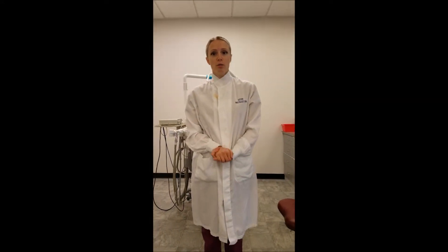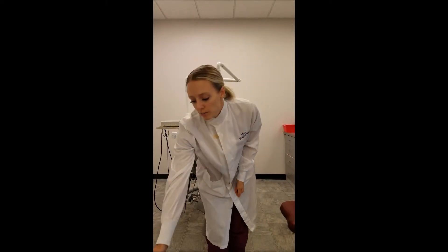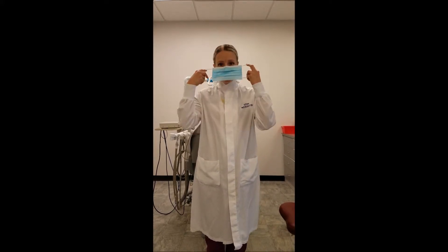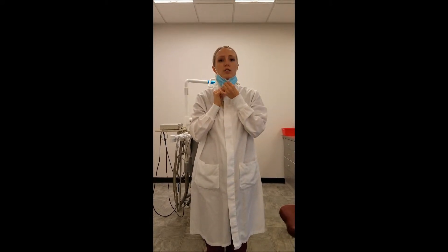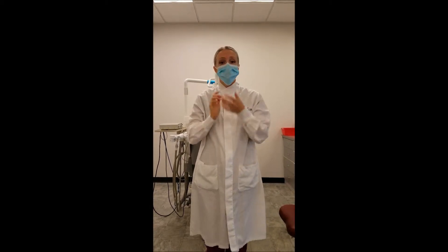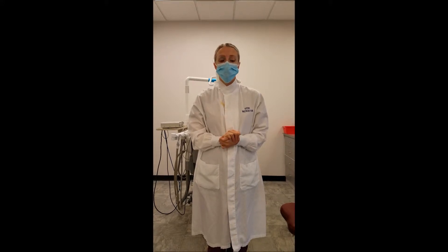Identify and demonstrate the proper use, wear, and removal of a face mask. A face mask should be placed before your gloves and glasses, and it should be used in every intraoral procedure. It should be placed over your nose and mouth, and it should never be worn underneath your chin. The face mask should be changed any time it becomes soiled or moist, or in between patients.